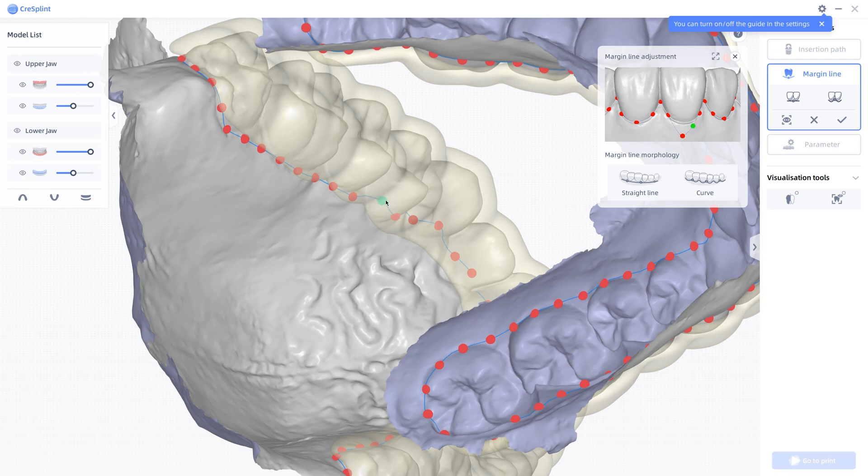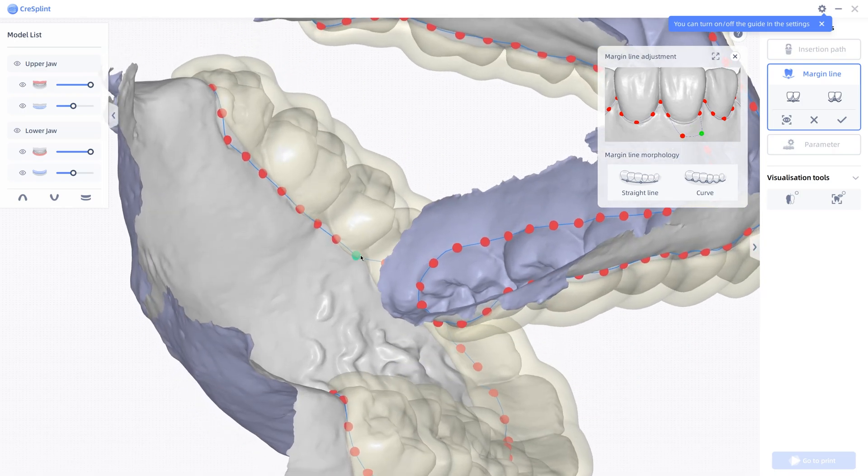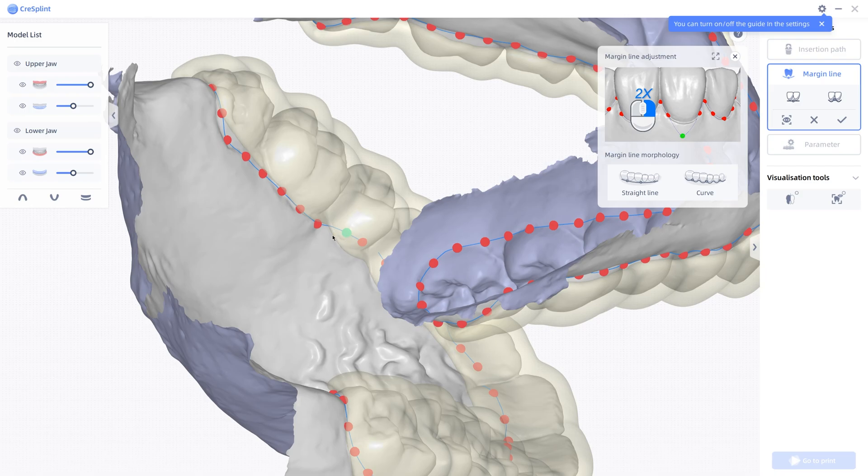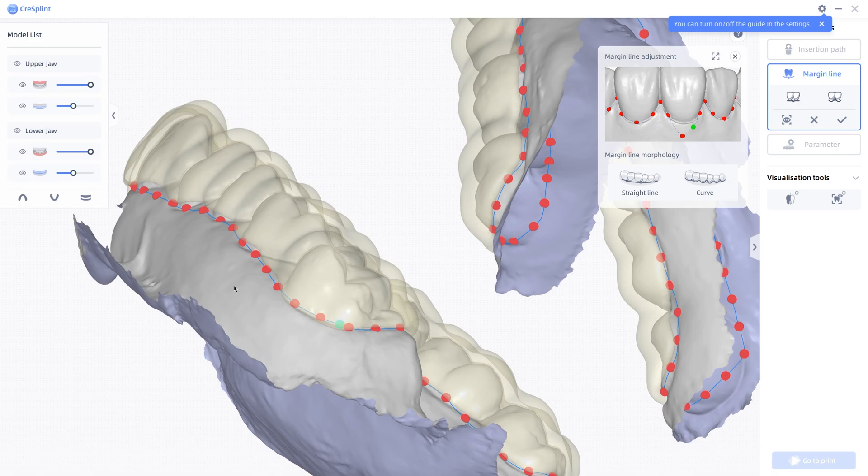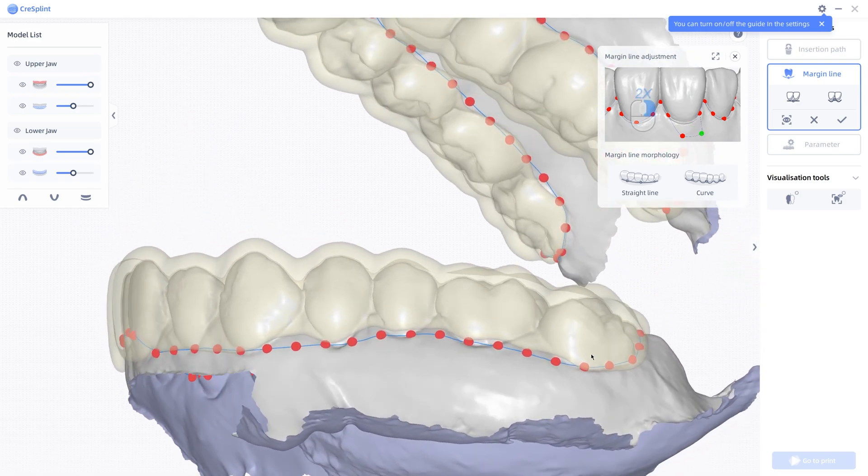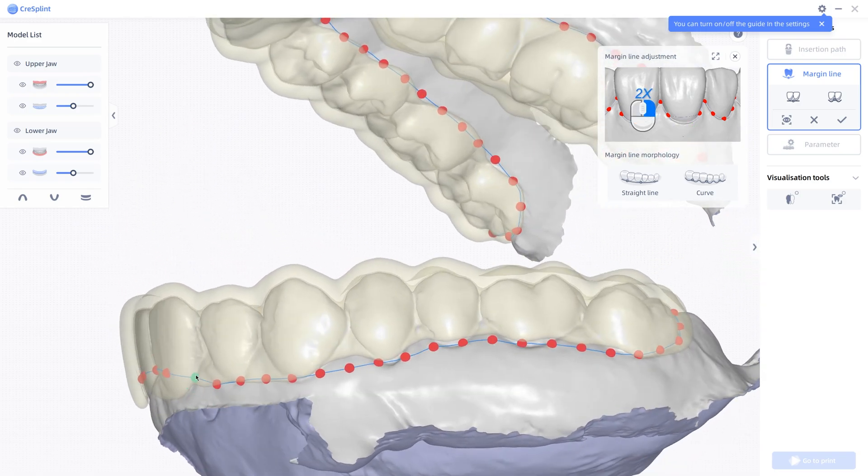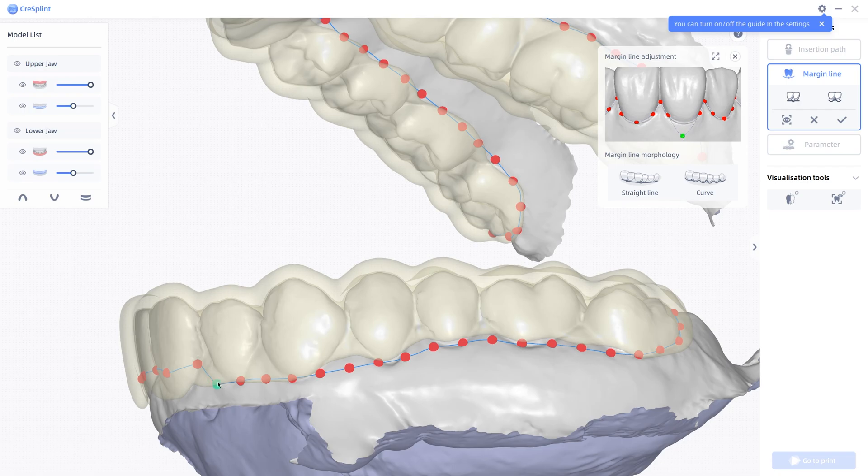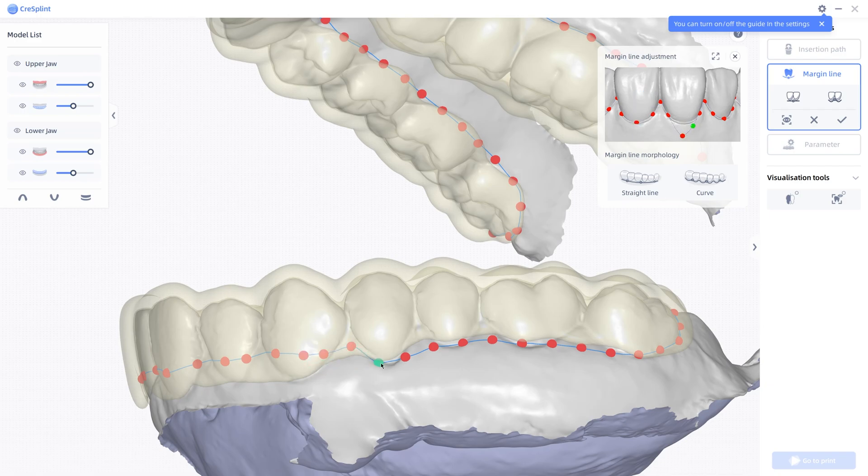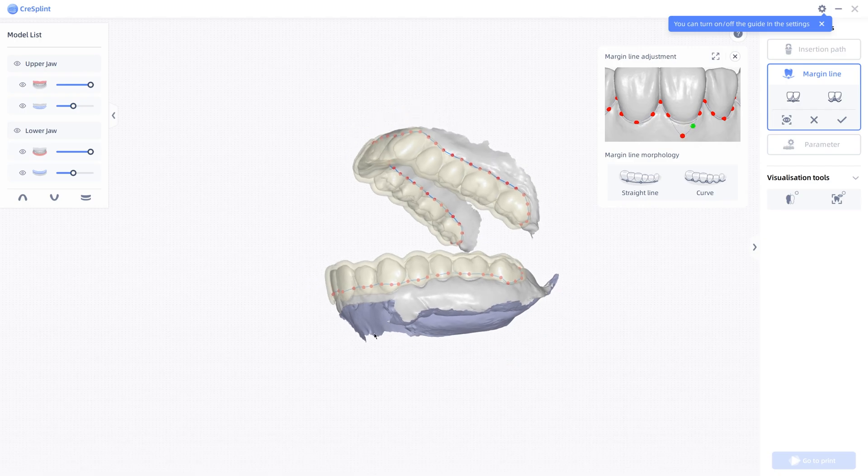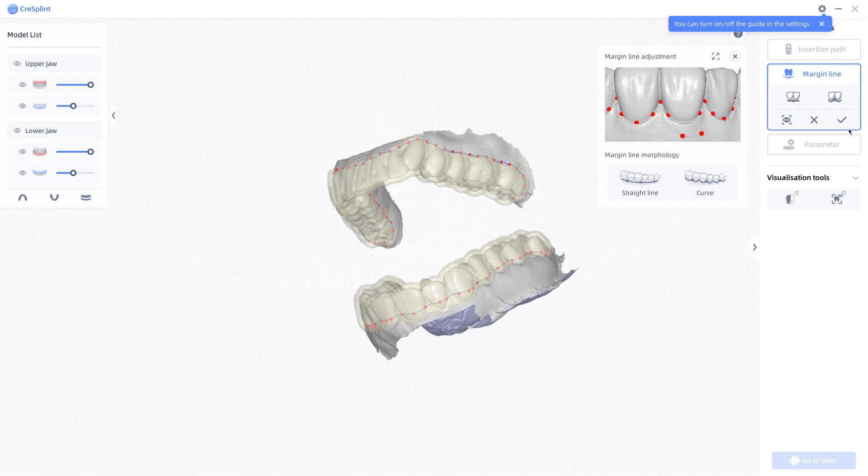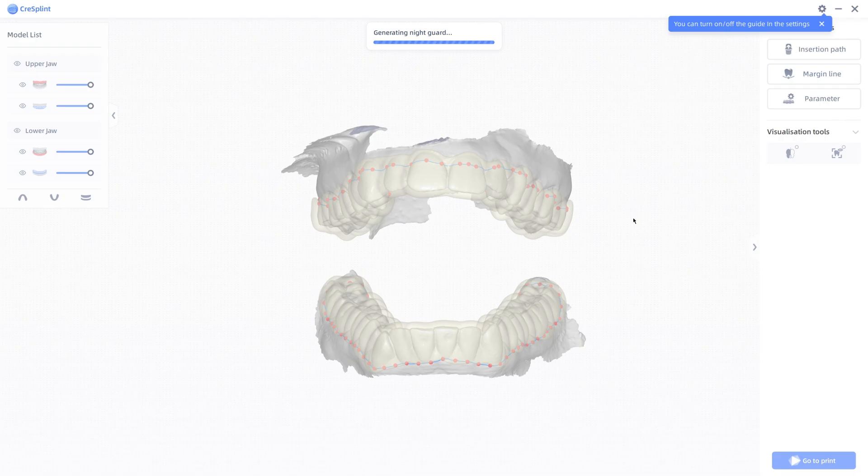I think with the defaults, you're going to get a working bite splint. But me personally. So you do realize that what you're doing right here is basically you're doing what you would do if you were trimming the bite splint after doing a suck down. It's just we're actually doing the trimming before we make the object, which is handy. I'm not going to bother with the other margin line, because I only want this model anyway. I'm going to hit the confirm button. And you can see here, it's going to see where it's way up here now. It'll bring it all down to that margin line I gave it. Okay. See that?